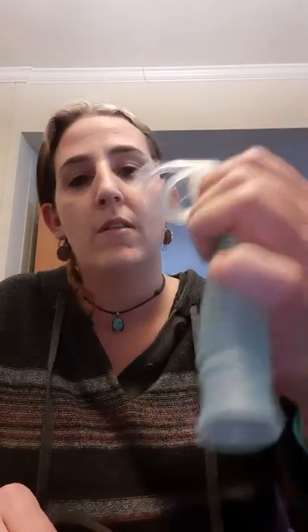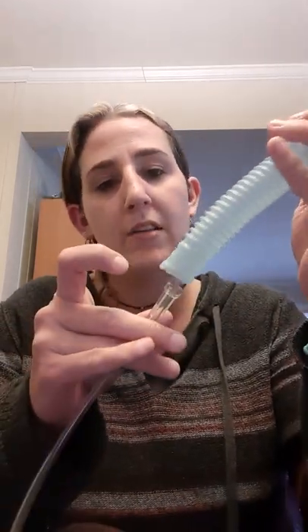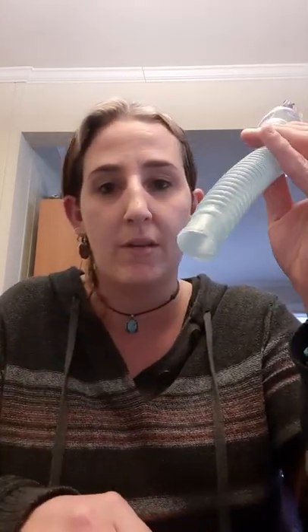So hopefully this is helpful — it was to me. That's how you do it on the go if you don't want to use a CPR Ambu bag, or if you can't — there's no way to run the oxygen through the portable collar because the tubing is too small, you'd have to seal that off and there's not a piece that does that effectively. So I hope this is helpful. Thank you for listening.